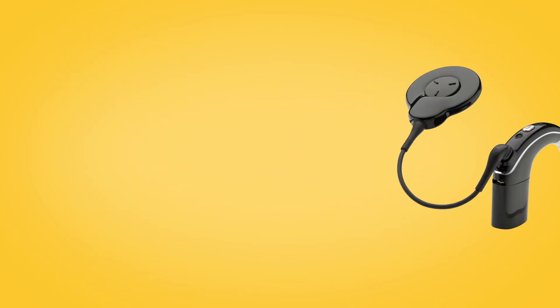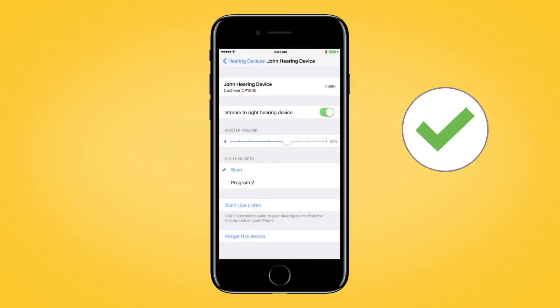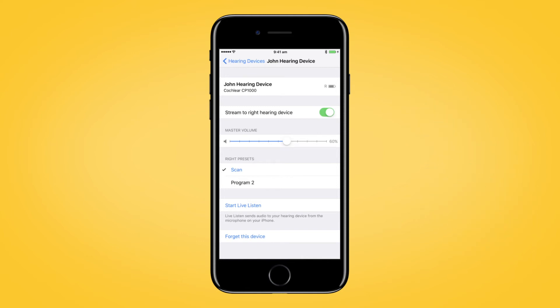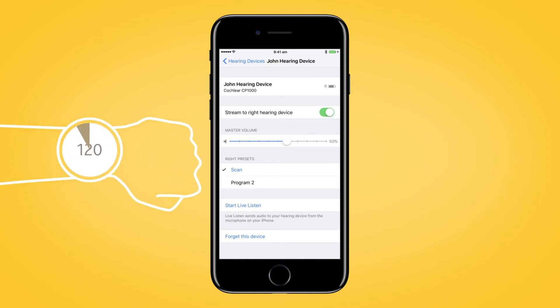The pairing will be finished when you hear a ripple tone and the sound processor light flashes blue for another four seconds. The pairing process may take up to 120 seconds.